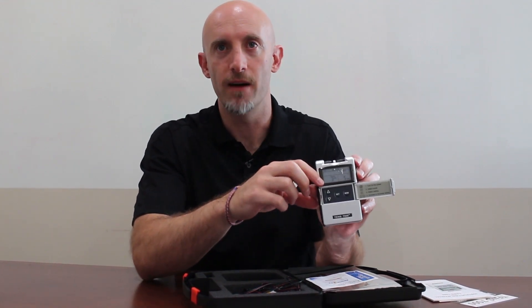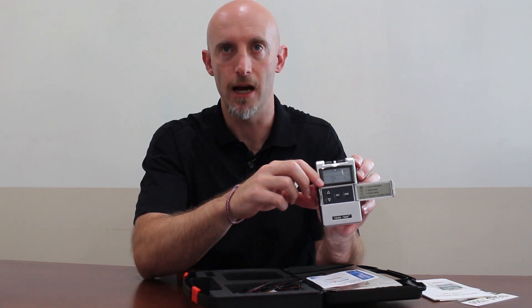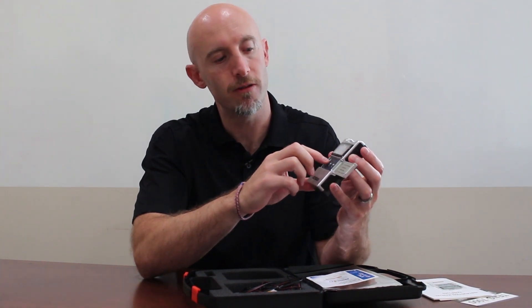The rate you want to have between three and five hertz. It's set at three now, but just to show you, I'm going to change it and go up to five.